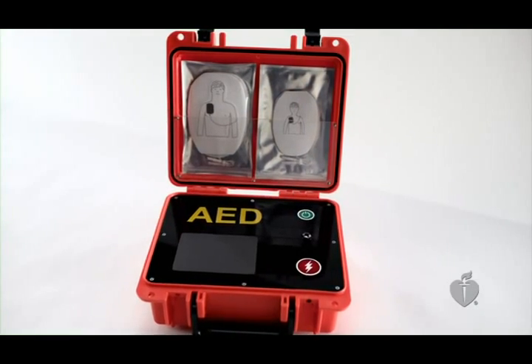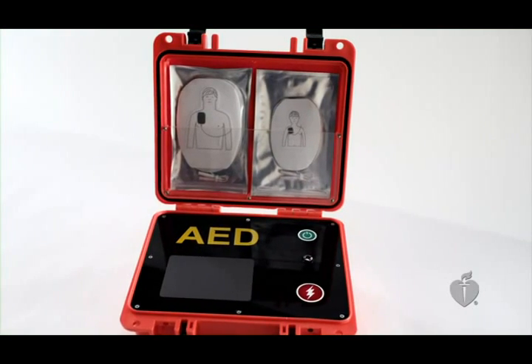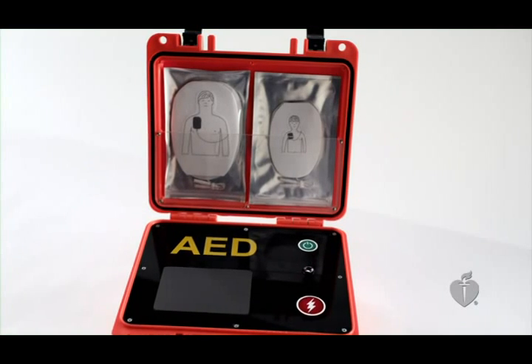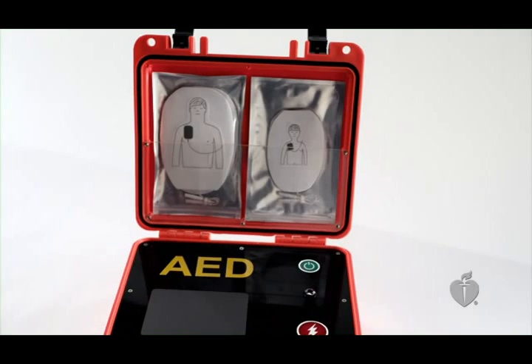If your AED includes a smaller size pad designed for children, use it. If not, use the standard pads, making sure they do not touch or overlap. The important thing is to be familiar with the AED you will be using, if possible, before you actually need to use it. When you are using an AED, remember to turn it on first and follow the prompts as it leads you through the rest of the steps.